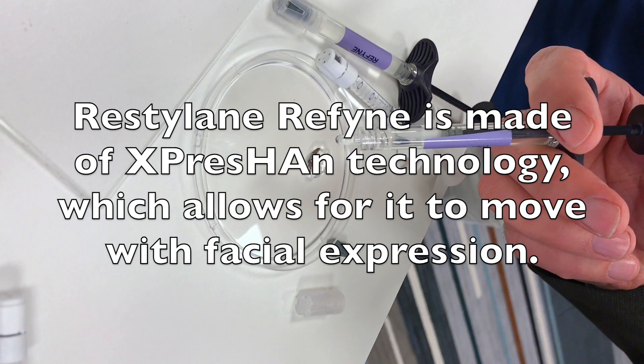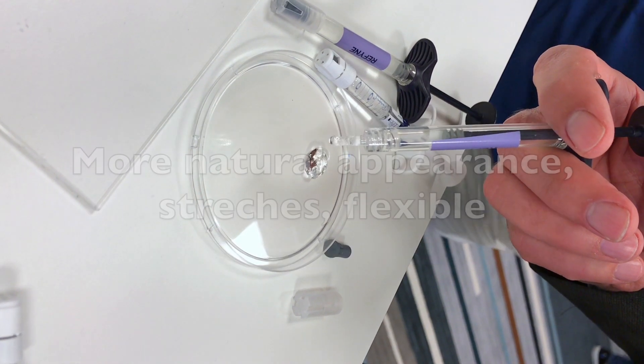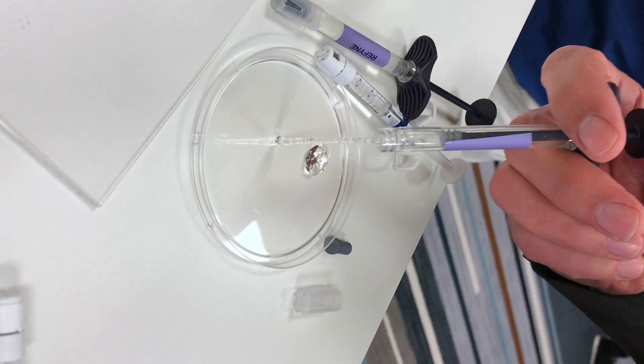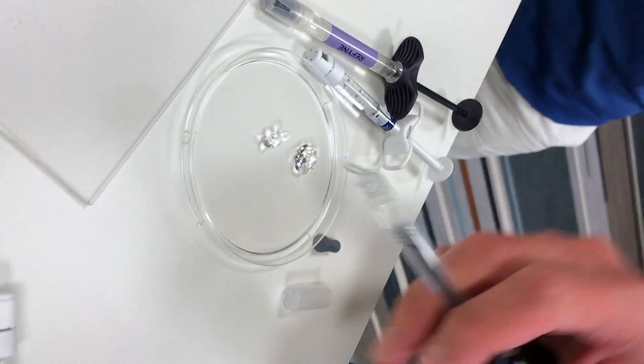Right here, we are showing Restylane Refine and demonstrating how flexible it is. You see how stringy it is? That gives it flexibility.